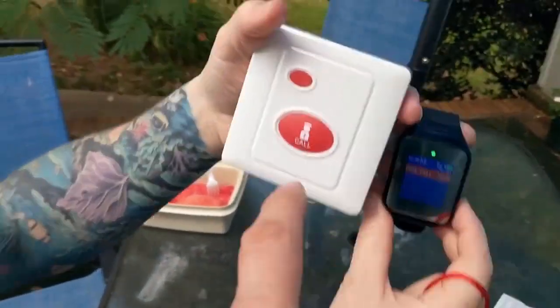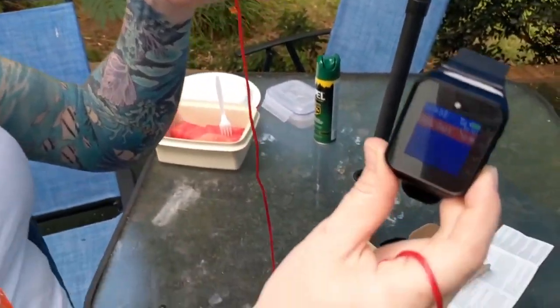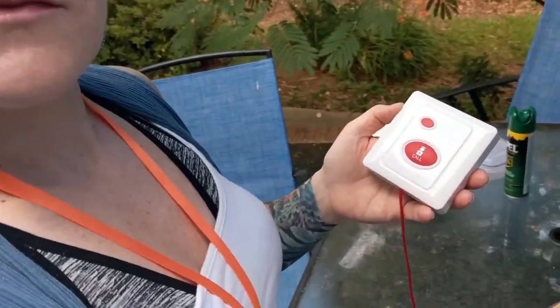Call one means this particular one is the one she tripped. So you didn't have to program that - nope, they already had both of them programmed all the way in, which is good. Now you can rename these as well but we're not going to go through that work. It's not necessary.